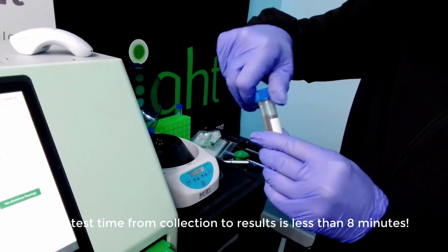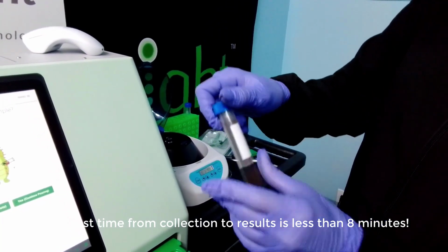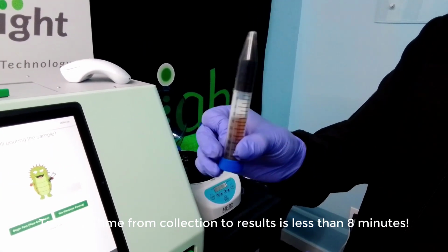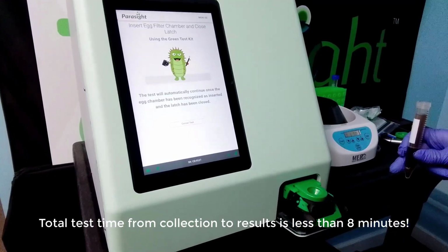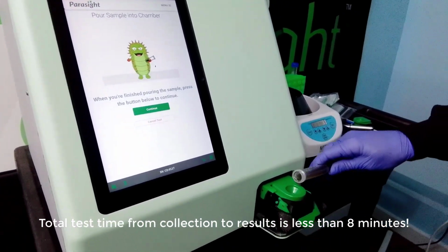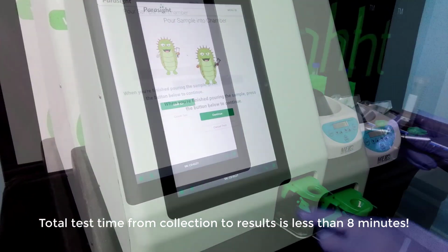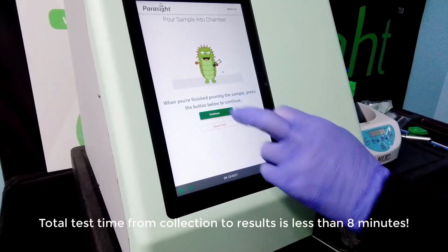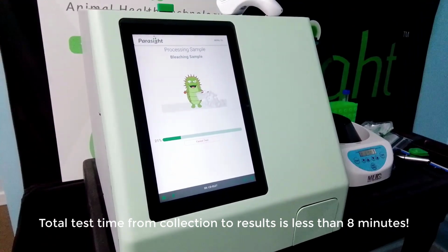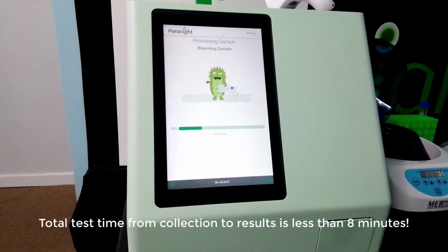You will see the filter has separated the sample for analysis. Pour the separated sample into the egg chamber. When ready, press Continue to analyze the sample. The on-screen prompts and progress meter describe the process of bleaching, washing, staining, and imaging the sample.